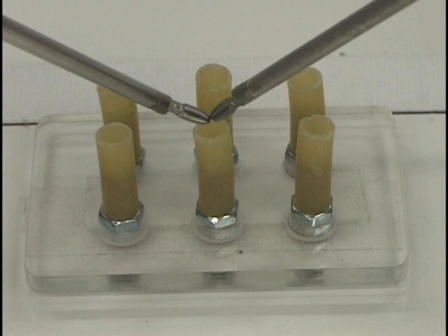The training task board consists of six hollow rubber pegs arranged in two rows. For each of the tasks, you will start with the far left peg, moving across the far row. Then move to the near left peg and move across the near row.